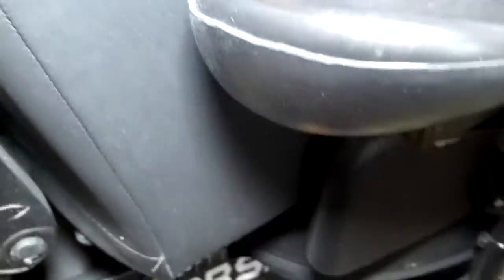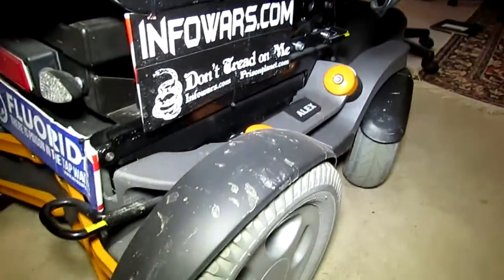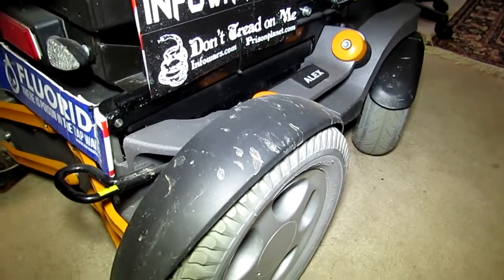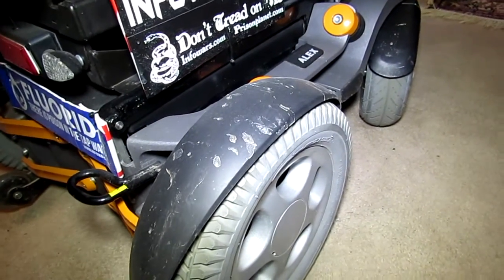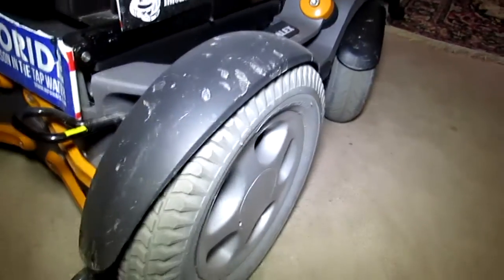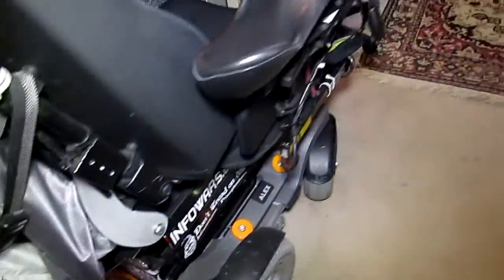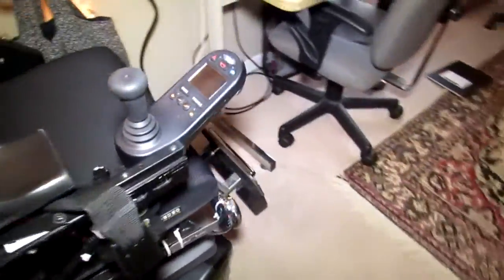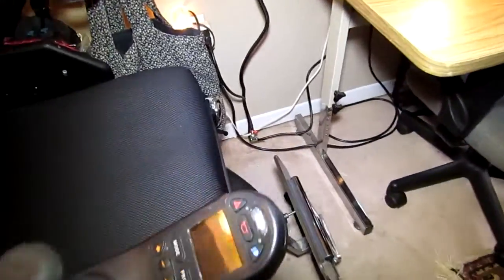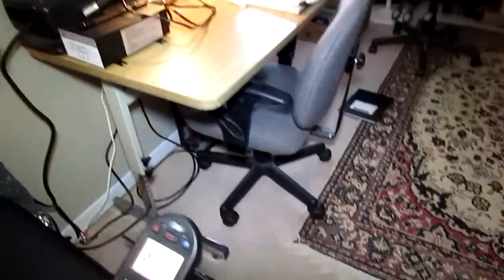When you're riding down the sidewalk hitting all the little cracks, this component — I trimmed it trying to bring down the noise level — makes a loud rattling noise all day long while riding. You would think they would have attached it really solidly so it wouldn't be doing this, but they didn't.